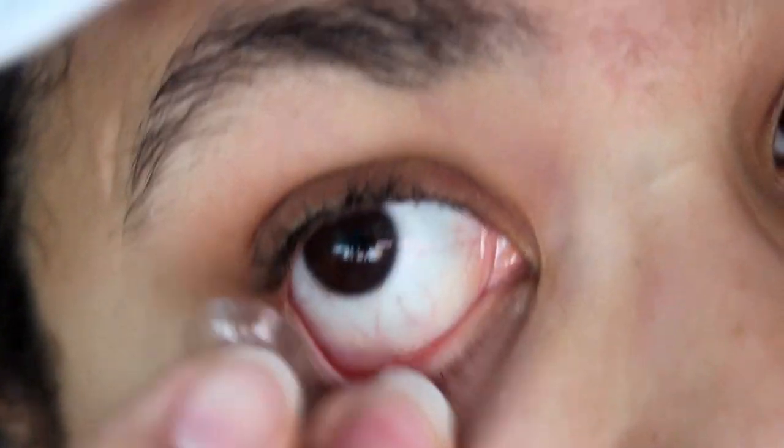Nope. It just went upside down. Why is this so hard? That is why I can't do it without a mirror — I can't see very clearly on the viewfinder. This is so annoying. There's another reason why I don't like to put contacts on.